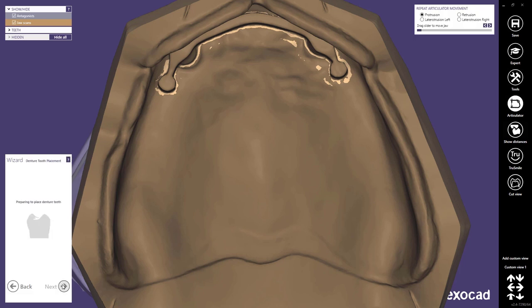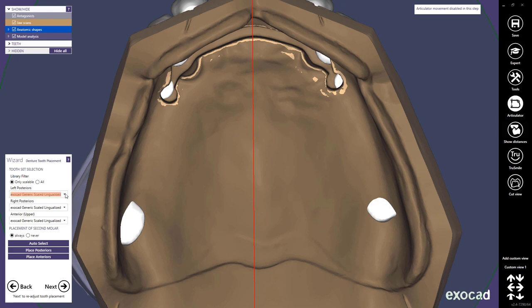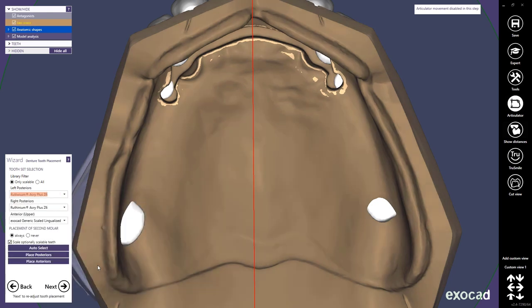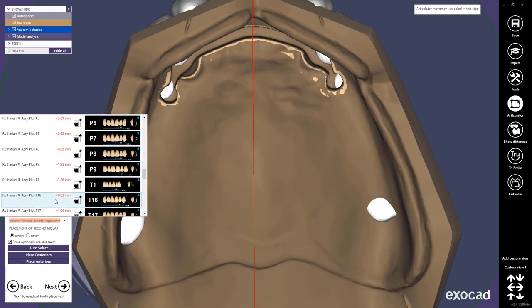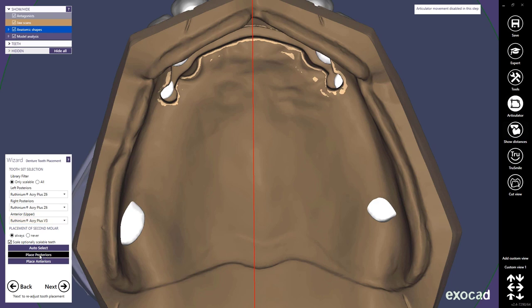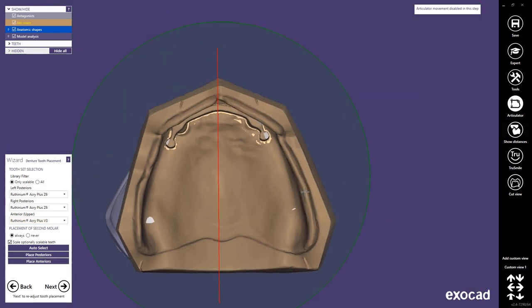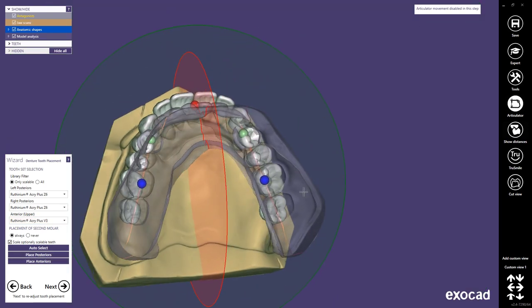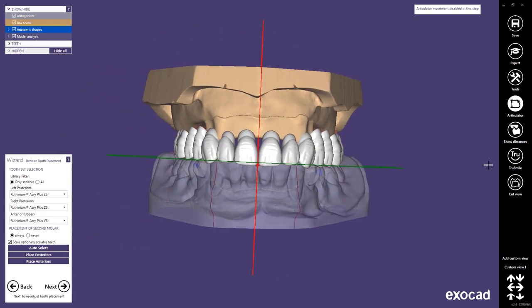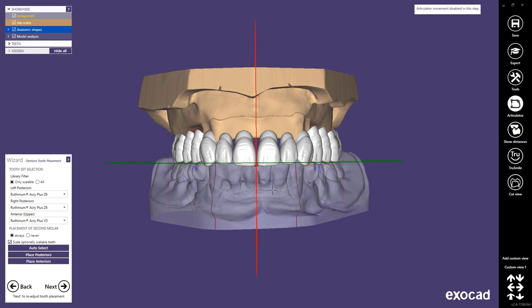Then you can just go next and you will get to your tooth selection. For a single arch denture with scalable teeth you always start off with the generic tooth library, but you can select any other library you want. You see a numeric value showing you the size difference in regard to your model analysis as well. Once you've selected your anterior and posterior teeth you can just press the buttons to place them. All of the libraries I'm selecting are marked as scalable so I have the option to change the shape and the size of those teeth individually later.